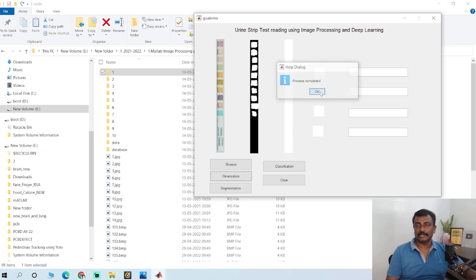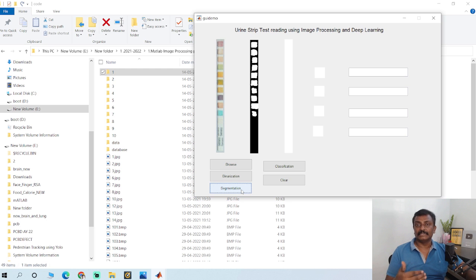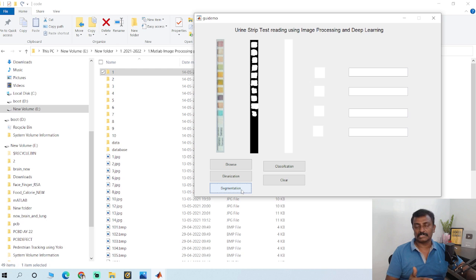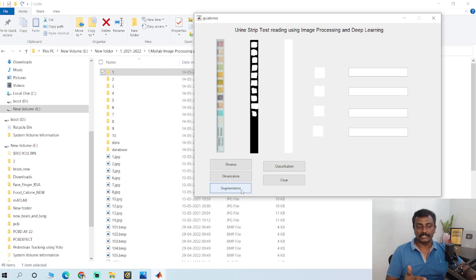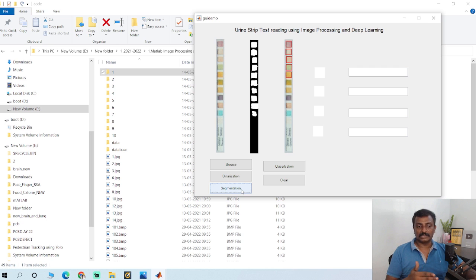Once binarization is done, click segmentation to segment each block separately. Based on the binary mask, it segments the strip.